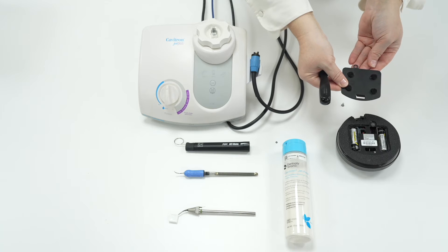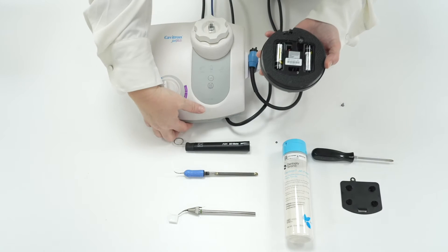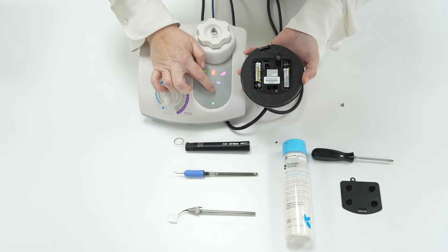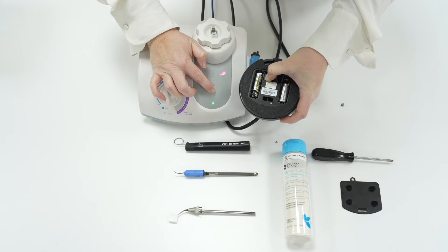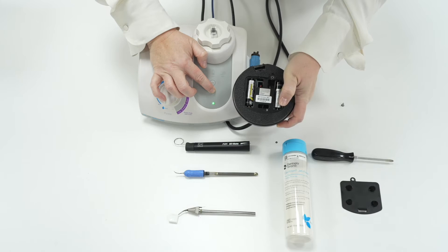So replump them and change the batteries if necessary. To check the foot pedal's Bluetooth connection switch on the Cavitron and hold down the purge button on the front of the Cavitron panel until all the icons start to flash erratically.